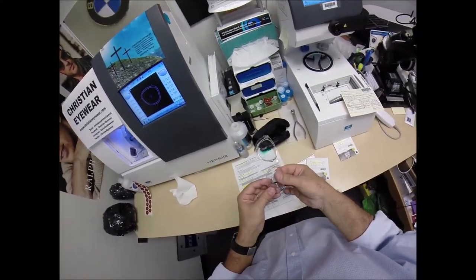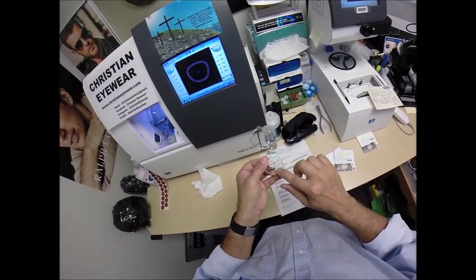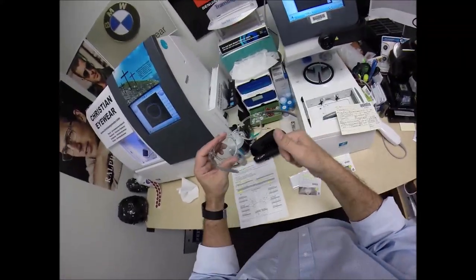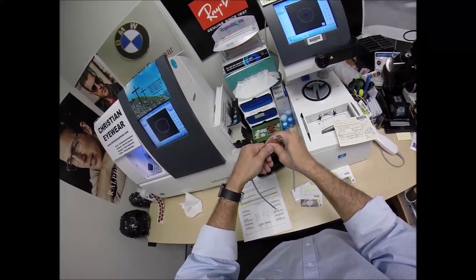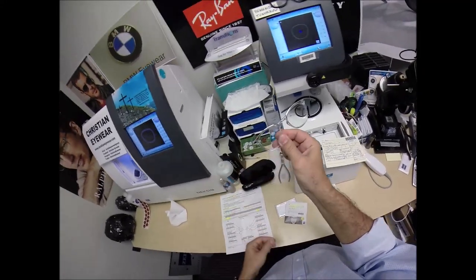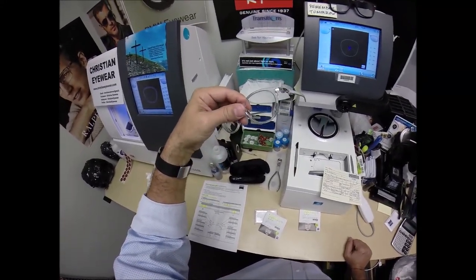Once all the optical sawdust is off the lens, Gary, if you ever have to install these lenses, have the side you're working on closest to you. Tuck the lenses in at the outside corners, holding it in place with the thumb, and then with your thumb at the nose, press down. Pull the sticker off. Now to take the lenses out, with your thumb at the nose, grab the lens by the other side, torque the frame a little bit using your thumb on top of the other thumb — press outward, out comes your lenses. To put the new lenses in, turn the frame with the temples down, tuck the lens in at the outside corner, push using your thumbs, press down at the nose. Your unbreakable lenses will snap right in. Just make sure your frame is roughly room temperature.